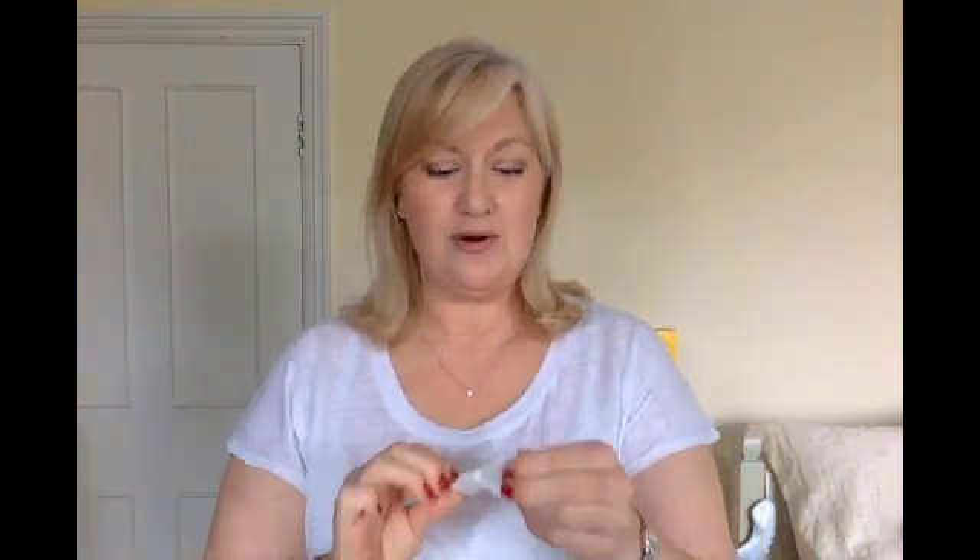What do we do about actually moving the sensor off? It's very straightforward. The first stage of the process is to prep the arm that you're going to be using. So this is an alcohol wipe, and the arm is already clean, but I'm just going to use this prep pad to make sure that the area that's going to take the new sensor is clean. And that takes just a little moment to dry off, so I've done it right at the start.